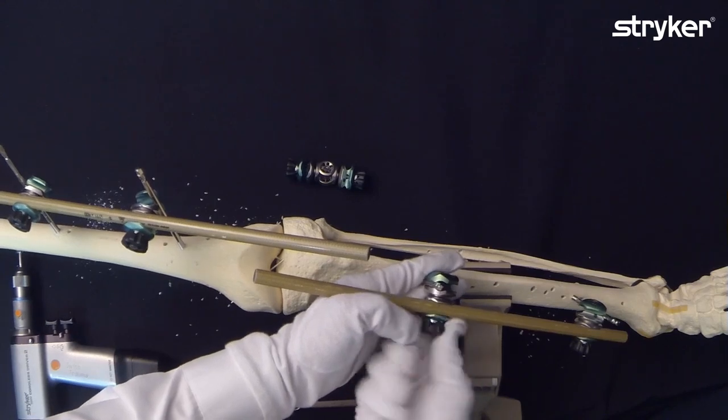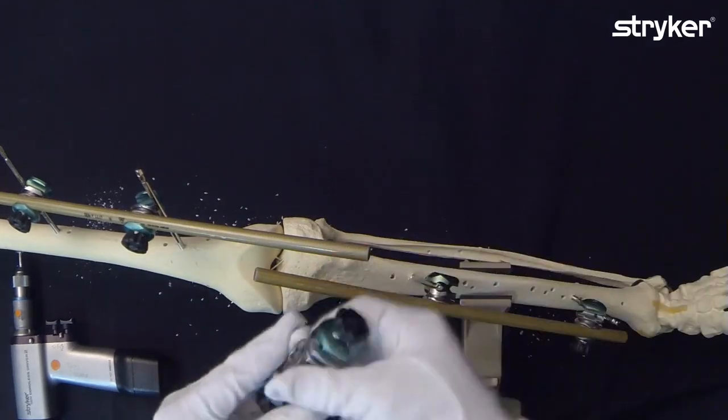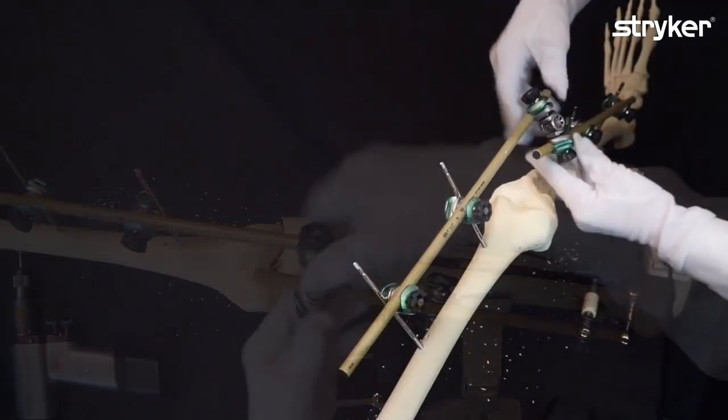Now since the multi-planar couplings have such a wide span, you can basically place them anywhere between the two bars.